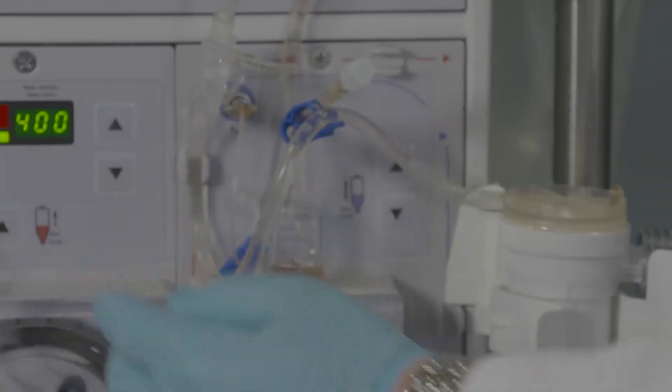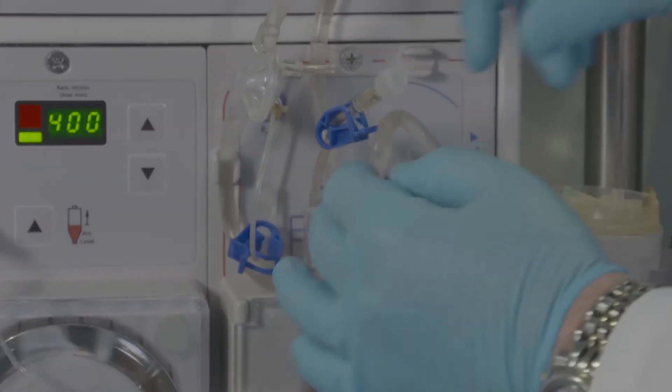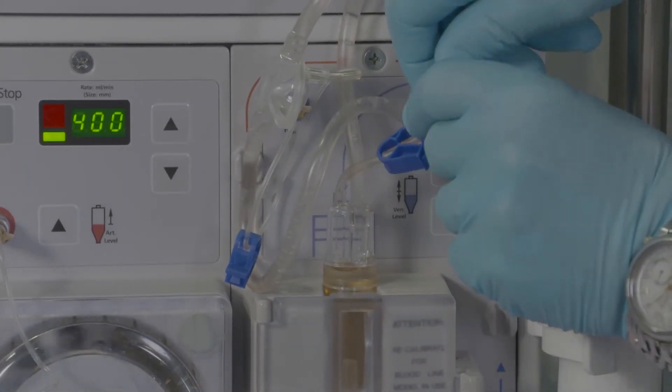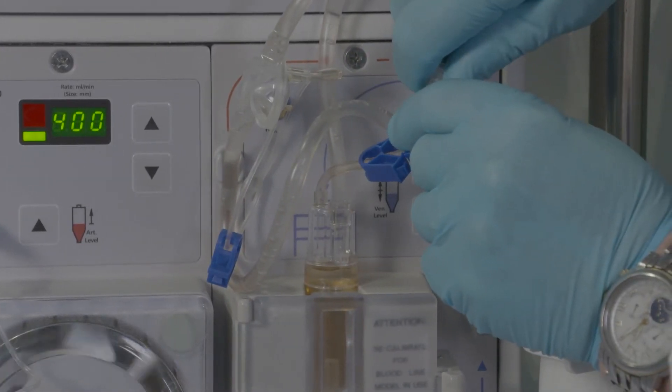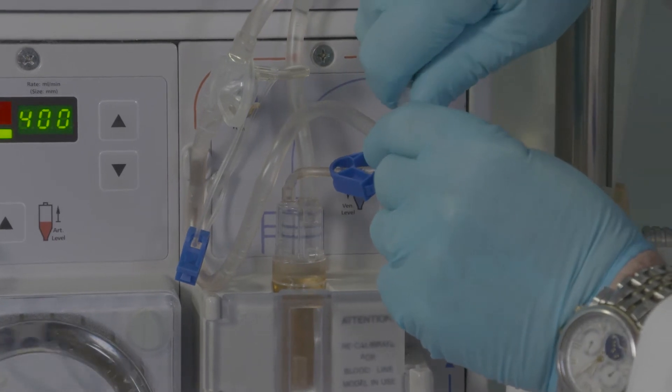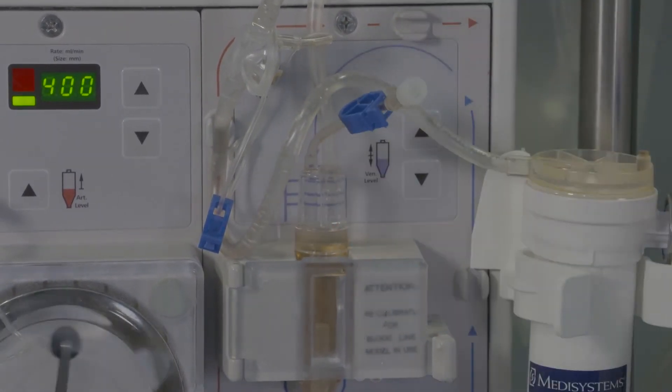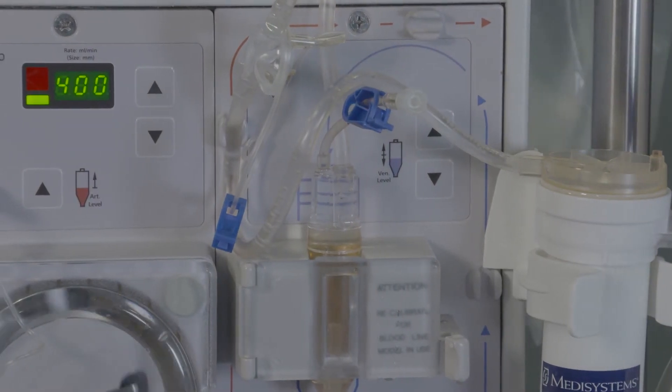Finally, tap the venous pod and venous chamber two to three times during recirculation mode. Fill the venous chamber to expel all air that has been collected there. Continue watching until saline fills up to the level adjust medication line just prior to starting treatment. Take this step any time medications are also administered.